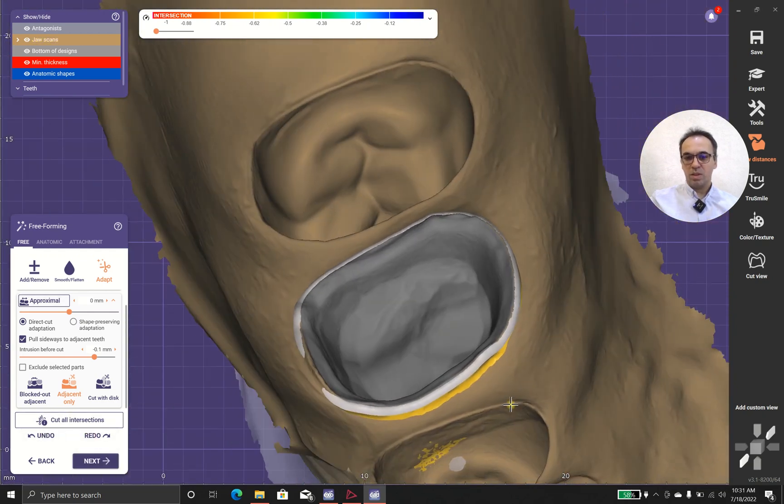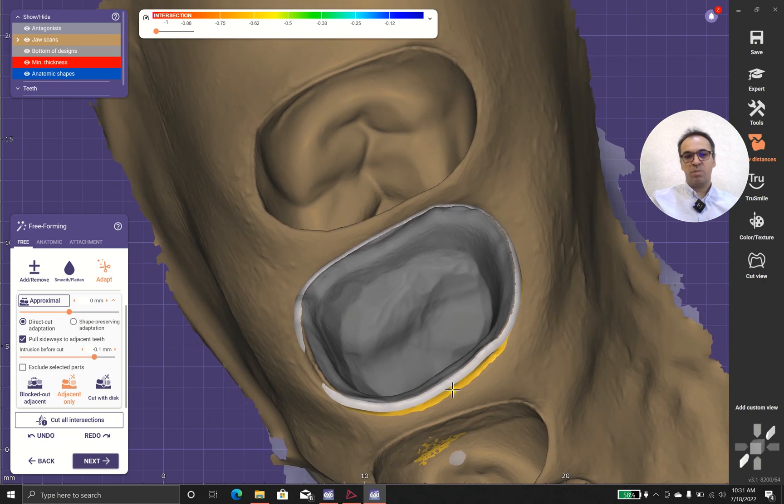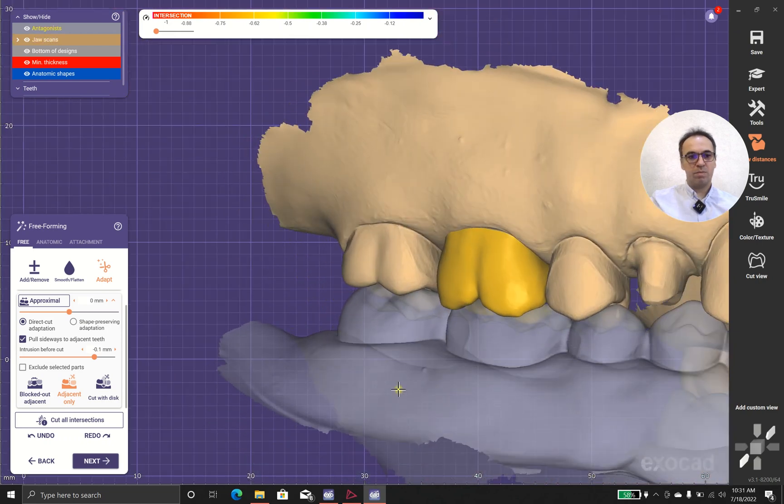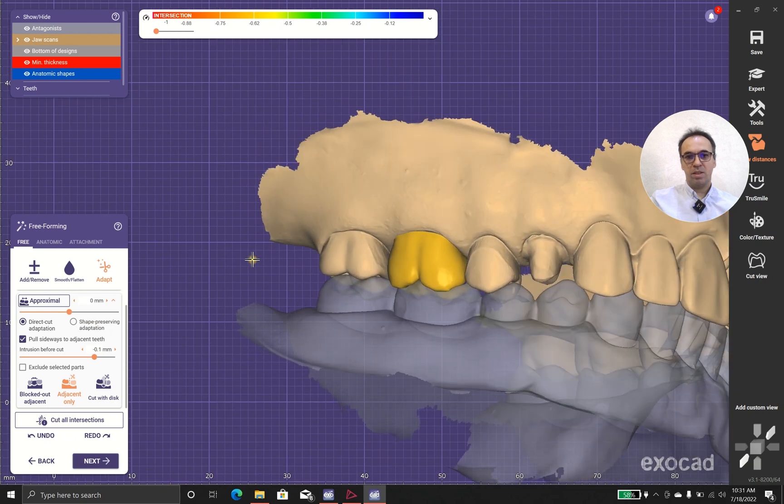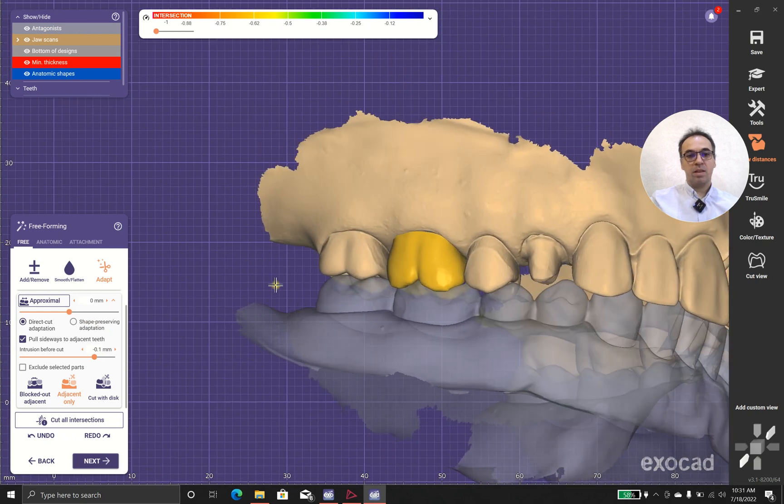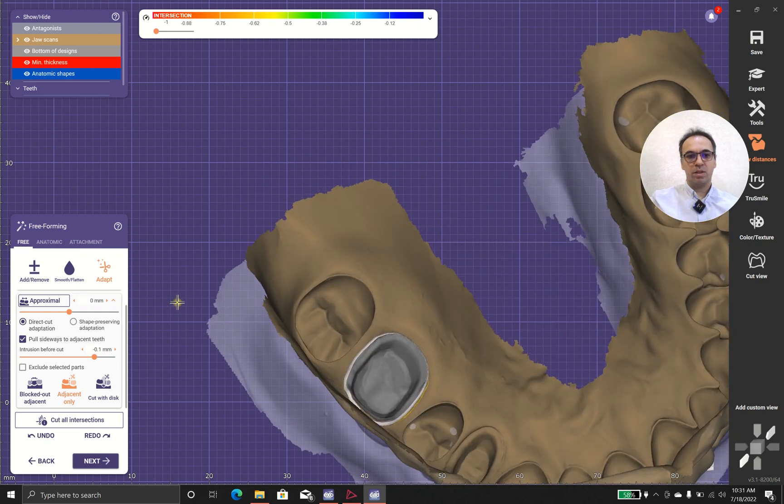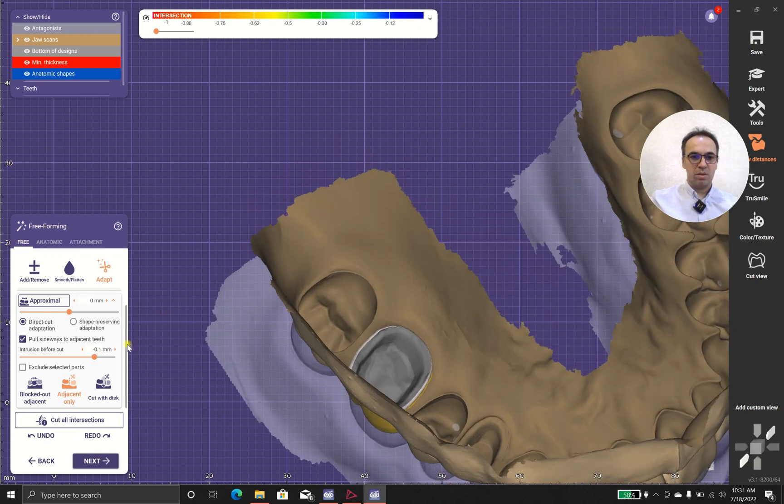And what's that? Why is that important? Because lots of time we have problem with remaining food beside the teeth, and when you have better contact with the neighboring tooth.